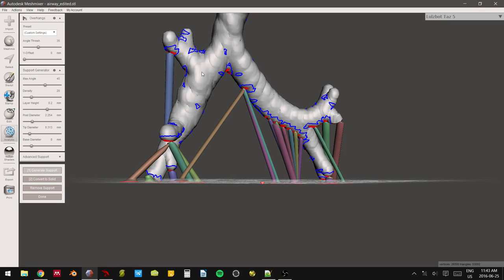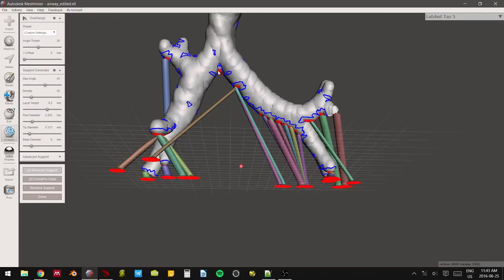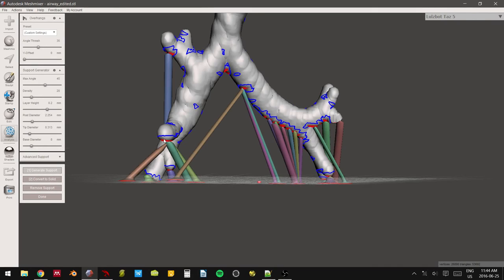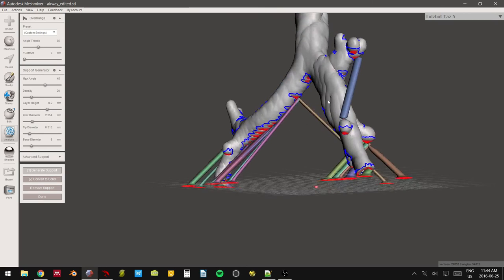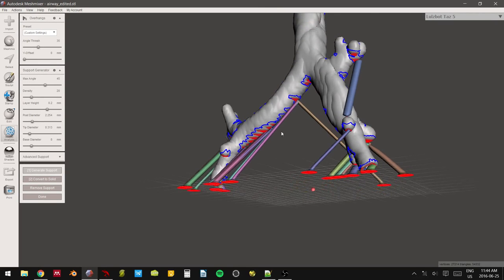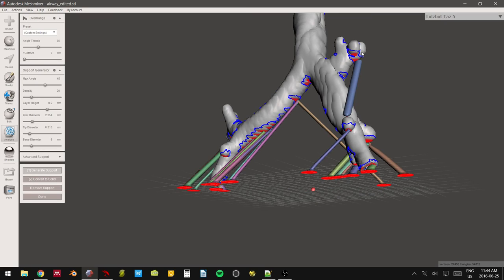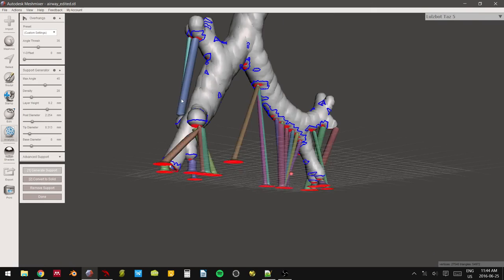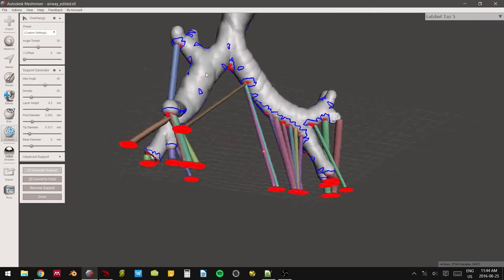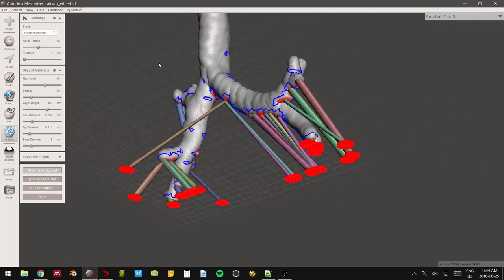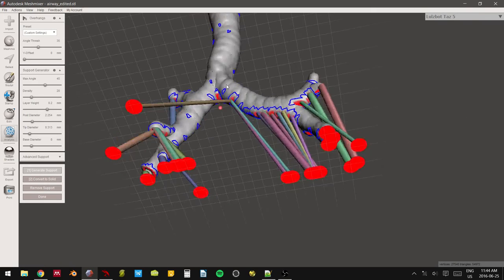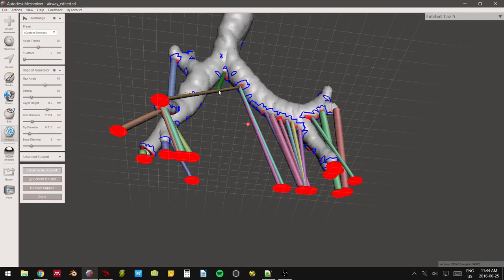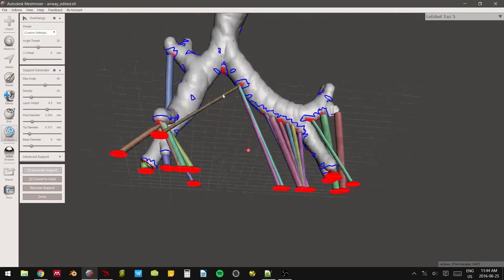Come on. You can go into your support generation and decrease some of these values. It gets really tricky to decrease these values though. If you're especially printing with Ninja Flex, it's not going to be happy with too tight tolerances. But sometimes if you just generate enough supports, it's okay. Like that. So just minimize it. Or make your supports a little bit skinnier. And then just hope that it works.